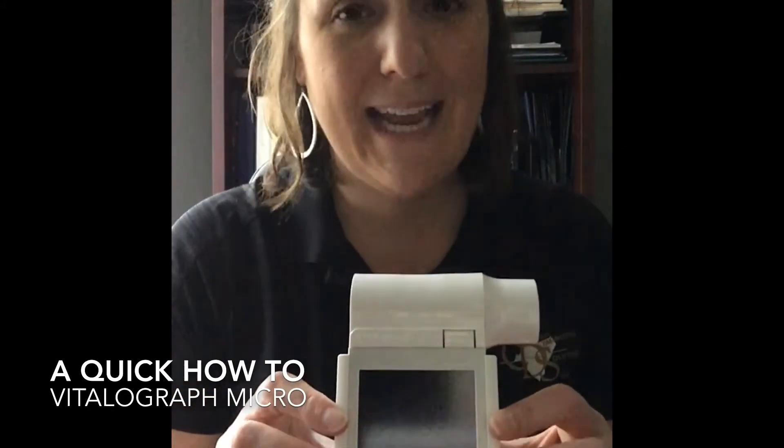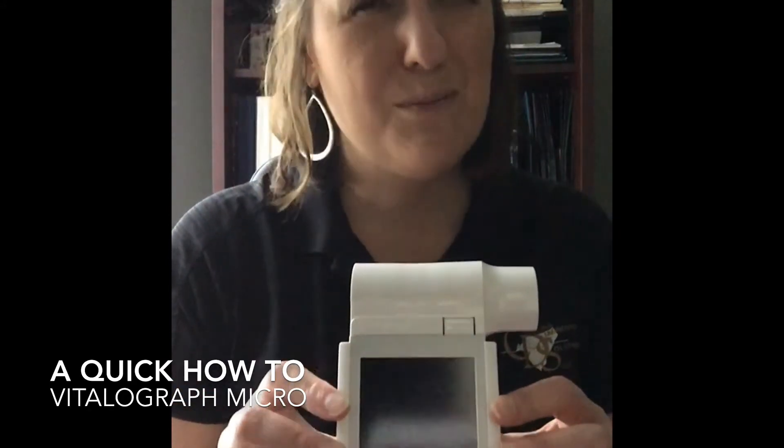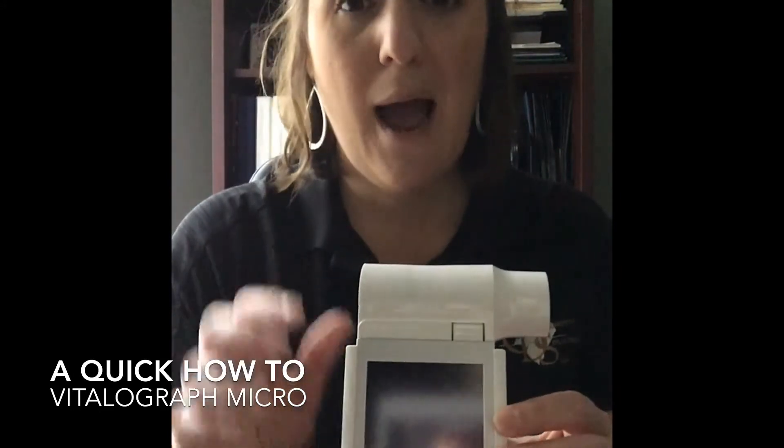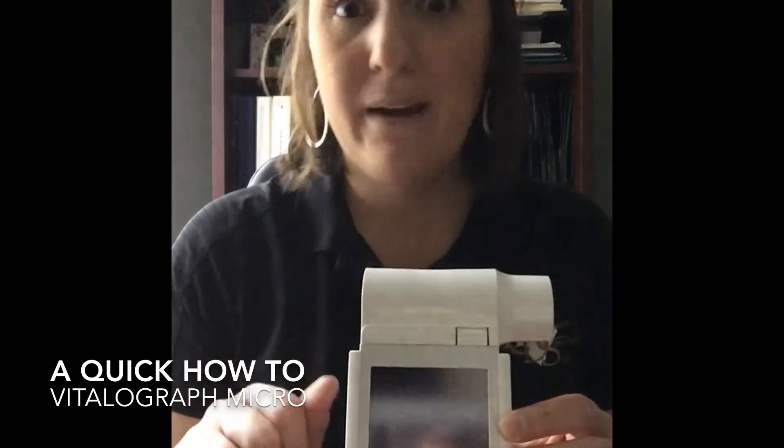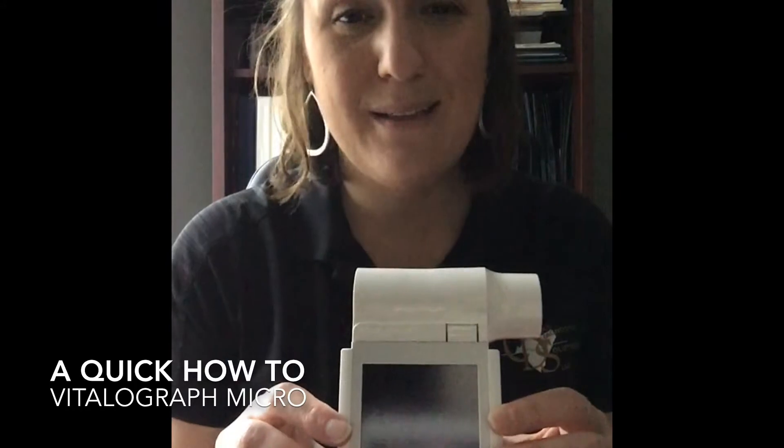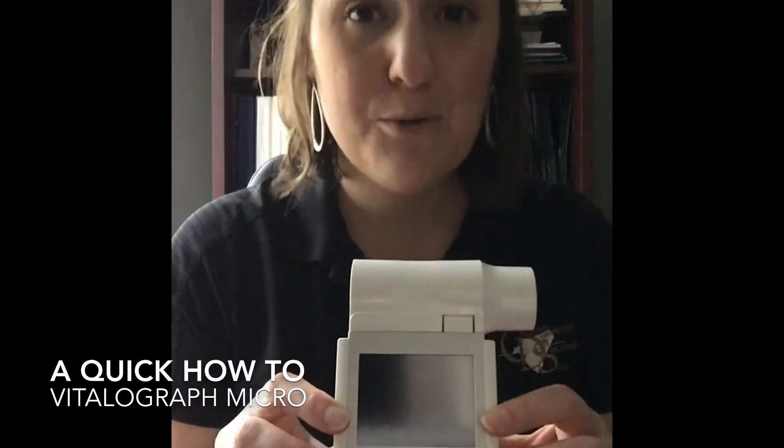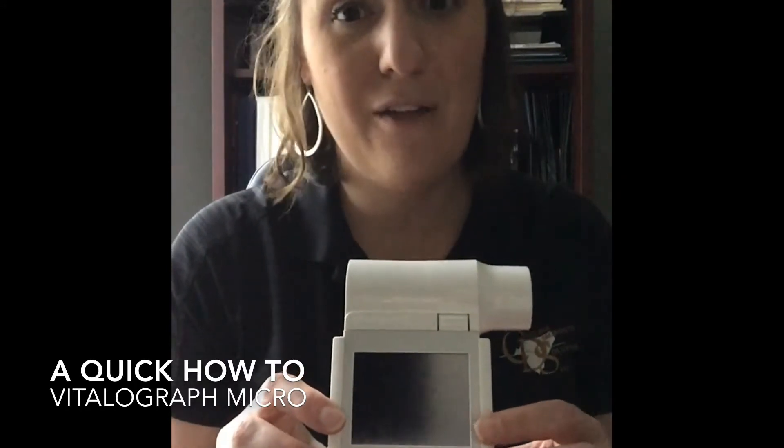All right, so I've already done my daily calibration check for this today, so I'm just really going to show you the simple pieces that you need, buttonology essentially, to operate this. We're not going to go into any spirometry theory today. That will be included on another video.